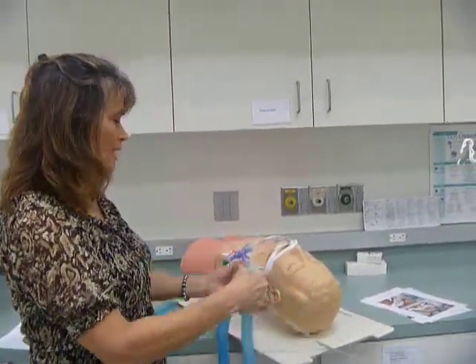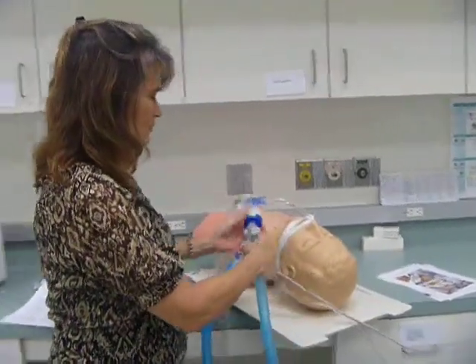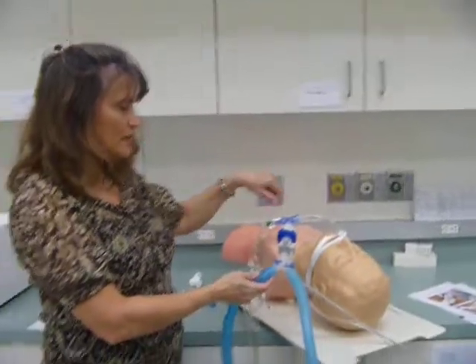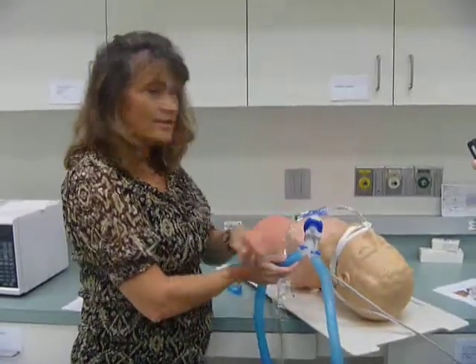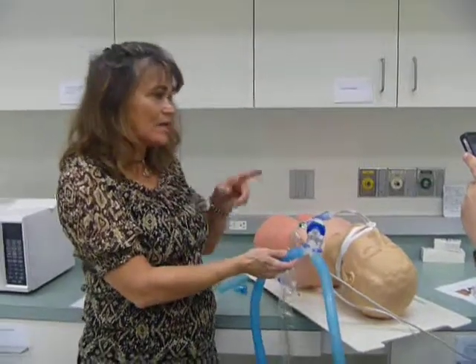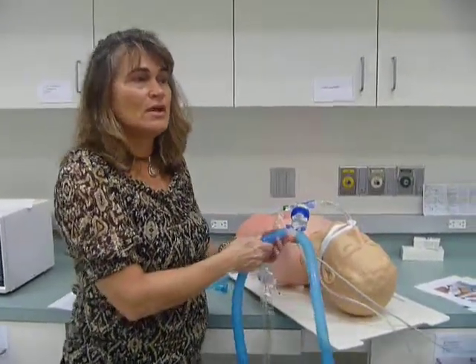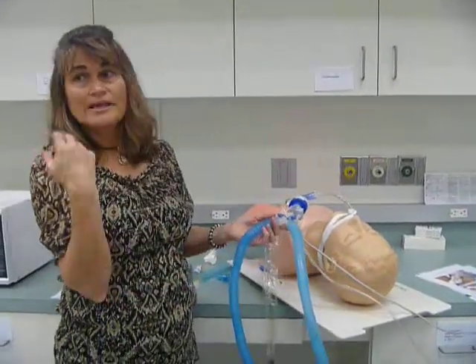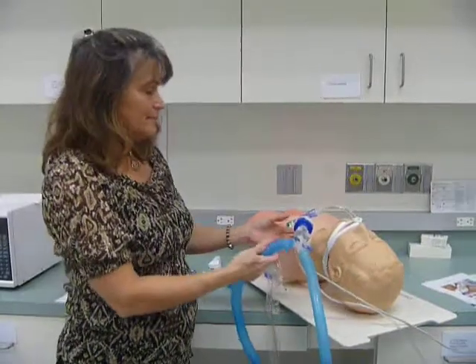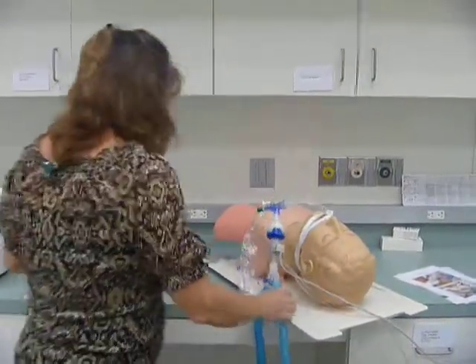So the Y and the HME. So now every time the patient breathes in, you'll see the waveform at 0, and as they exhale, the exhaled air and the CO2 comes out, you'll see the waveform building up, and it'll show you how much CO2 is coming out. So we can tell if they're not breathing well enough because they'll have really high CO2s. I'll leave this alone for now.